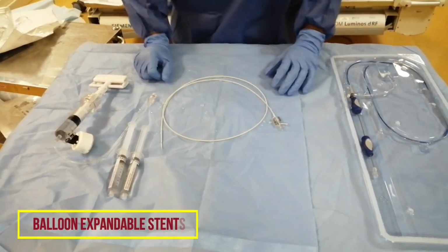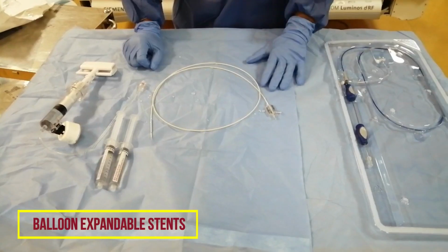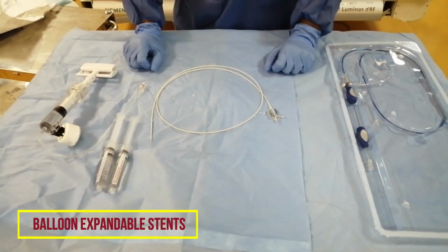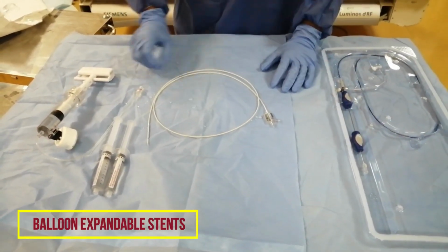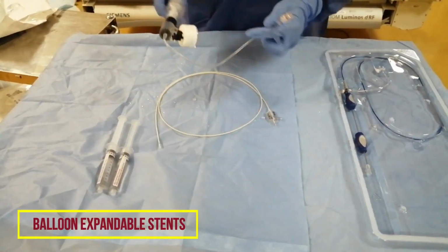So today we are going to demonstrate the stents we use regularly during IR procedures. According to the deployment, we have two types of stent: balloon expandable stents and self-expandable stents. We are going to demonstrate both stents. Okay, let us focus on this one.